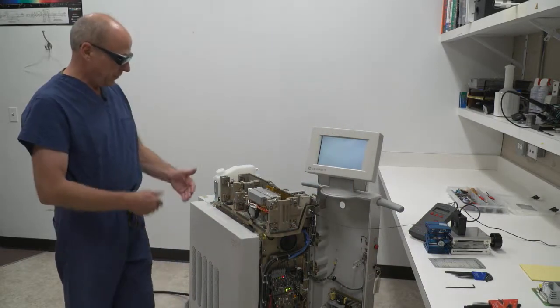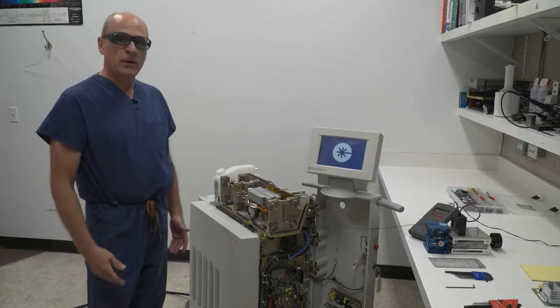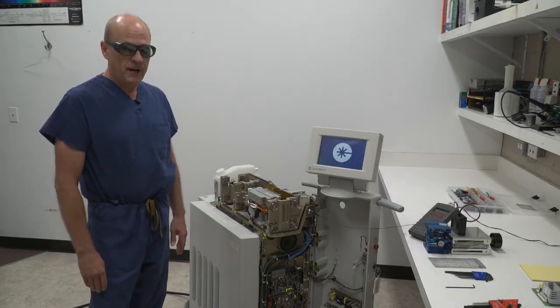In a moment you're going to see this flash in a very bright succession. I'm going to look away again for the safety of my eyes.